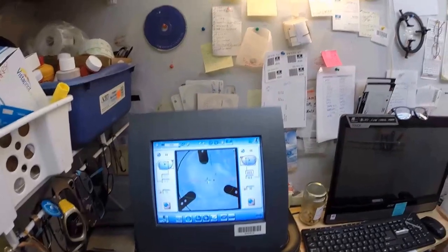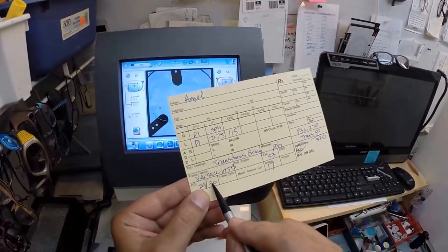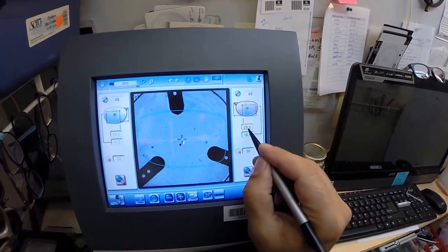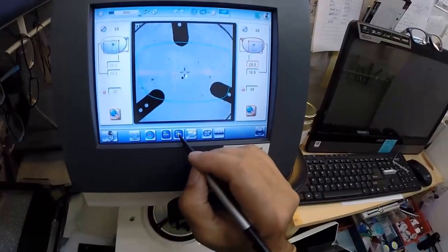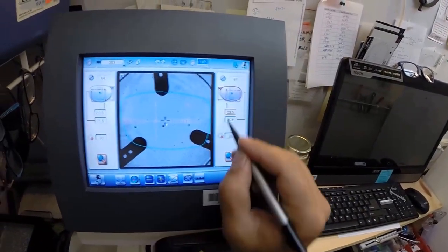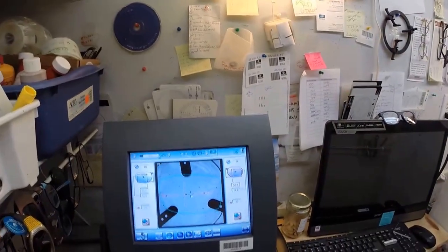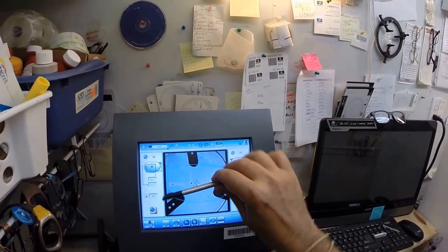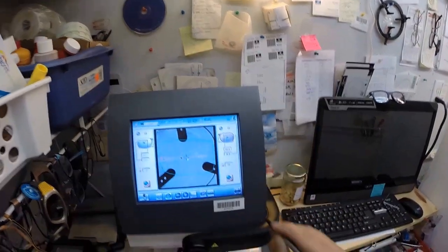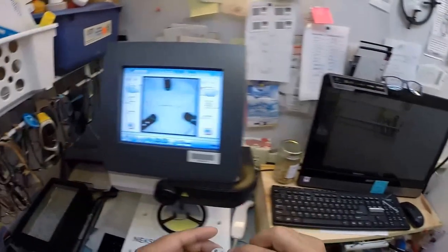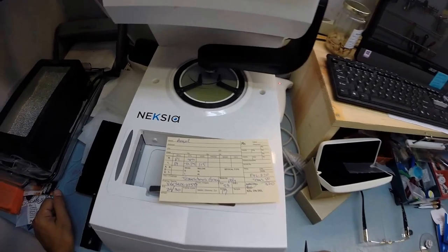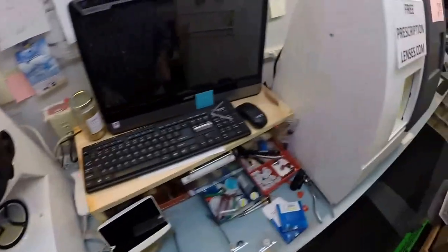This is a non-prescription lens for your right eye, but I am going to hit that button. The arm is going to come down and place the block onto the right lens. I am going to do the same thing now for the left lens. This is critical that I place it where it is supposed to go. Your pupillary distance for your left eye is 30. I am going to hit the plus button twice until 30 pops up there. Put that dot in the optical center, those other two dots tell me it is lined up perfectly, that it is oriented in there just right. I almost forgot to put the block on there. Pull the paper away to make the black side sticky and hit the button. Now the arm is going to come down and place the block onto your left lens.